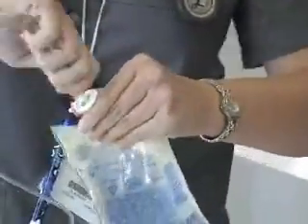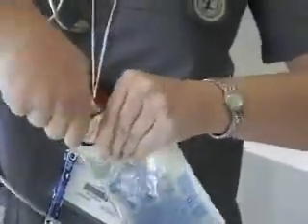To spike the bag, you want to push in and do a turning motion like this. Okay, so now you're in your bag.